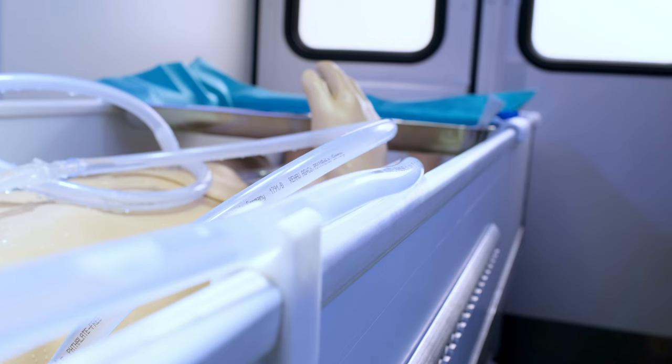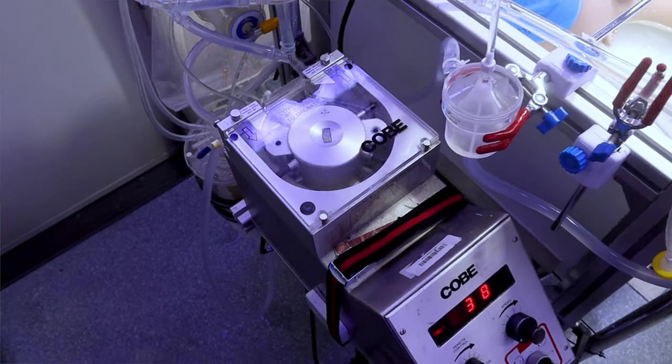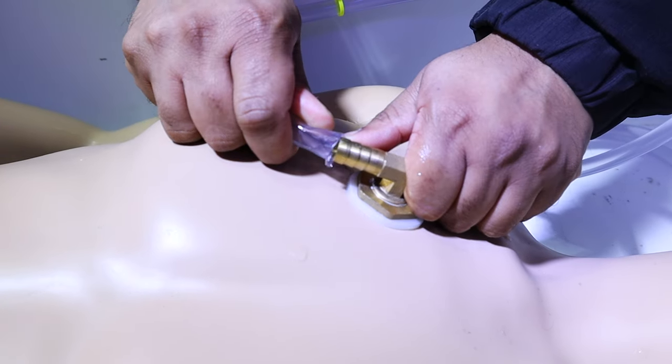Before cooling below zero degrees Celsius, a cryoprotective agent must be perfused into the patient. This medical agent stops ice crystal formation in the body. A perfusion circuit — essentially a heart-lung machine — is used to deliver the cryoprotective agent into the patient's blood system. The system shown here is the test and training version; for every real patient, a new sterile system would be used.